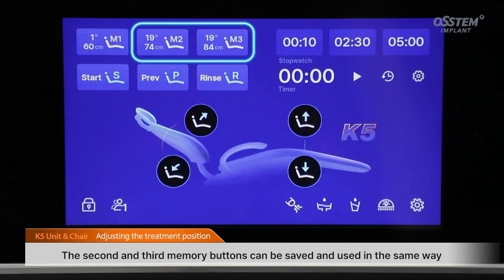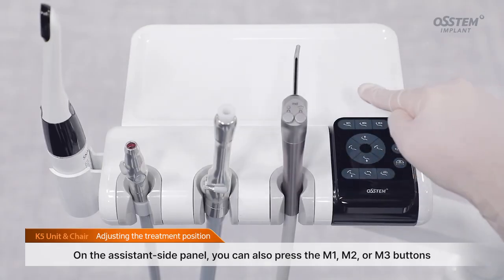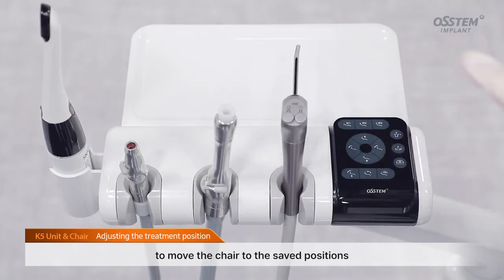The second and third memory buttons can be saved and used in the same way. On the assistant side panel, you can also press the M1, M2, or M3 buttons to move the chair to the saved positions.